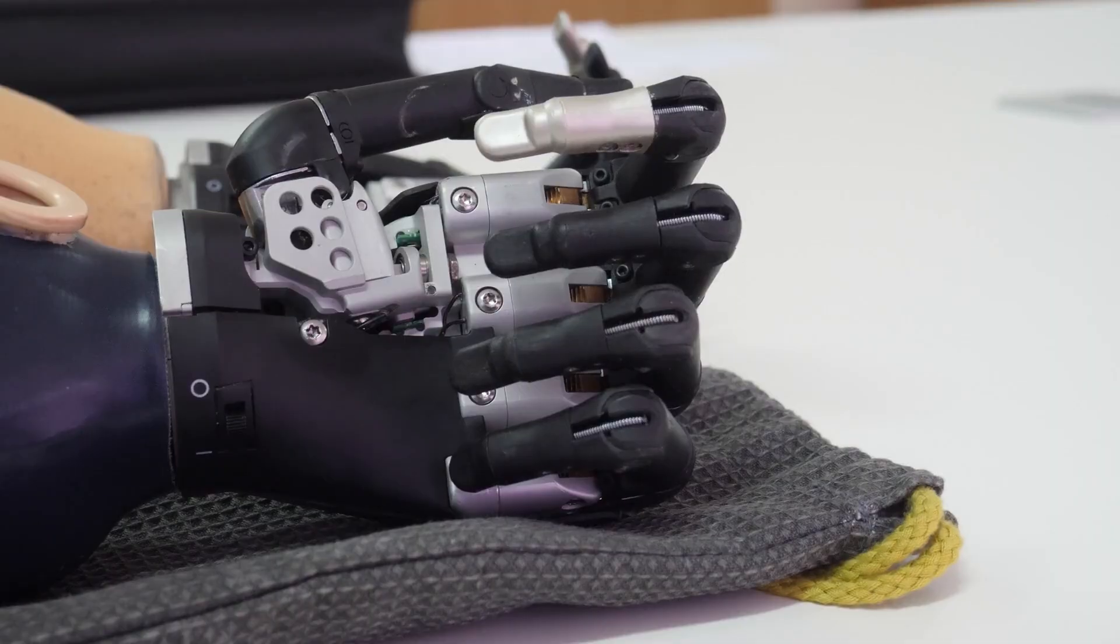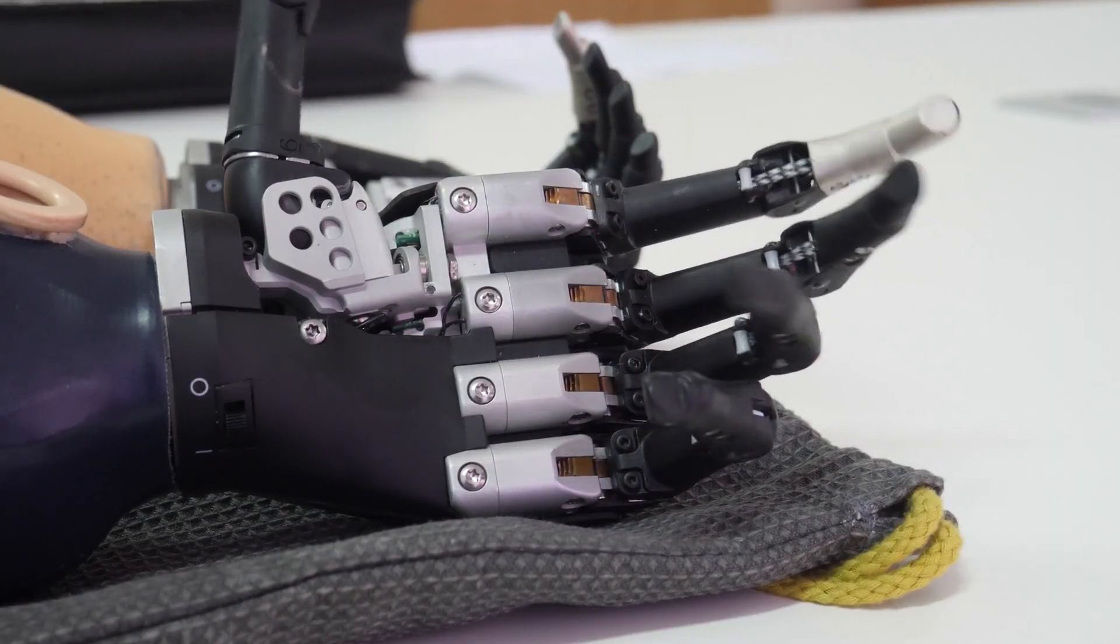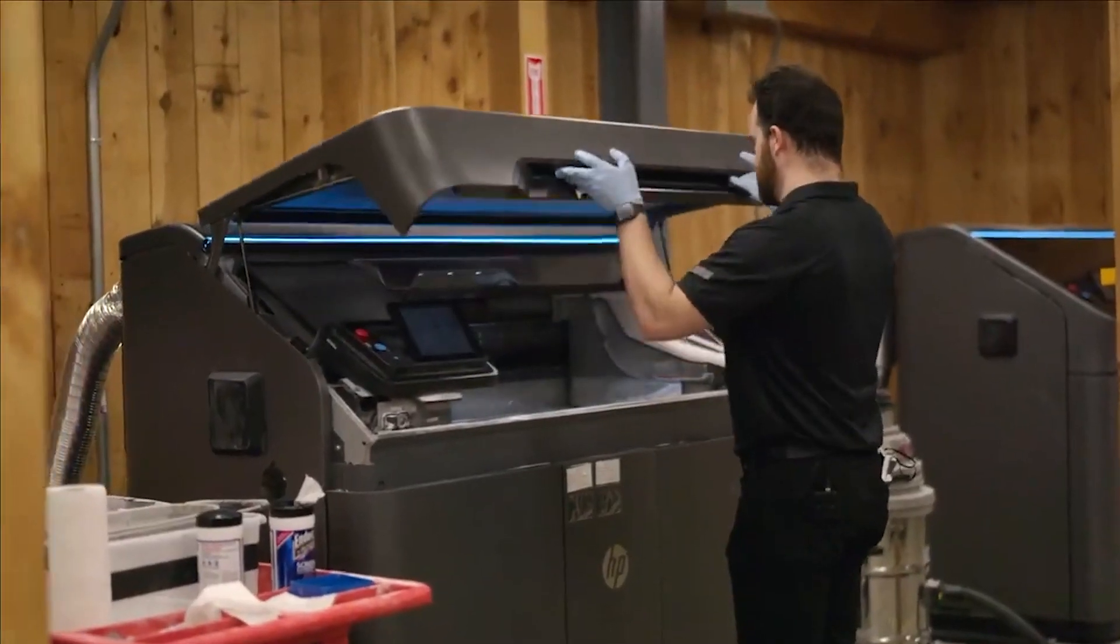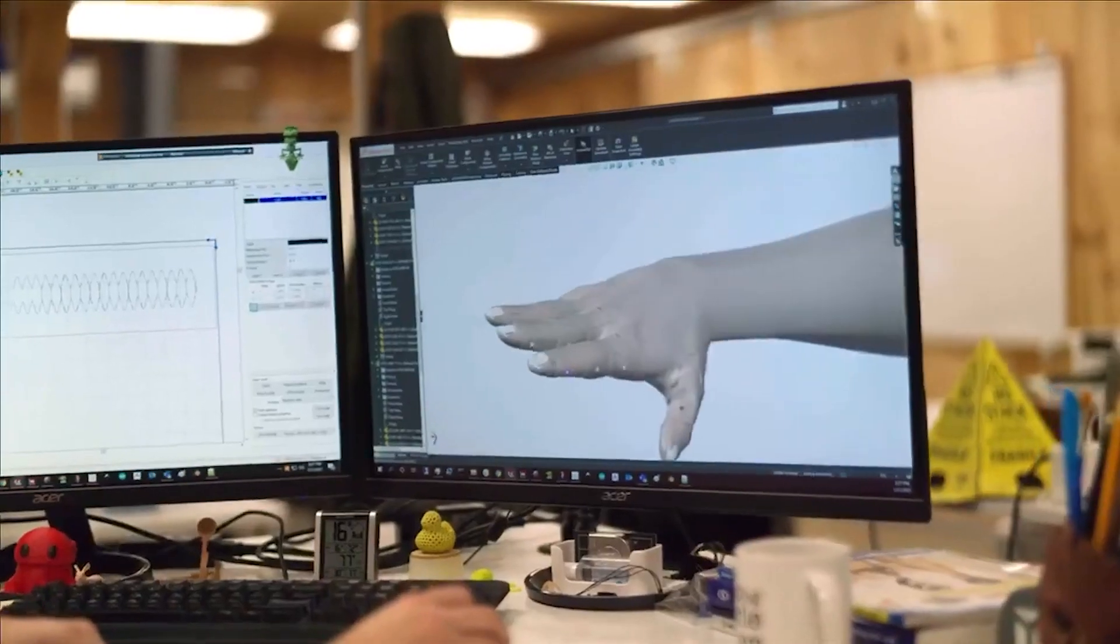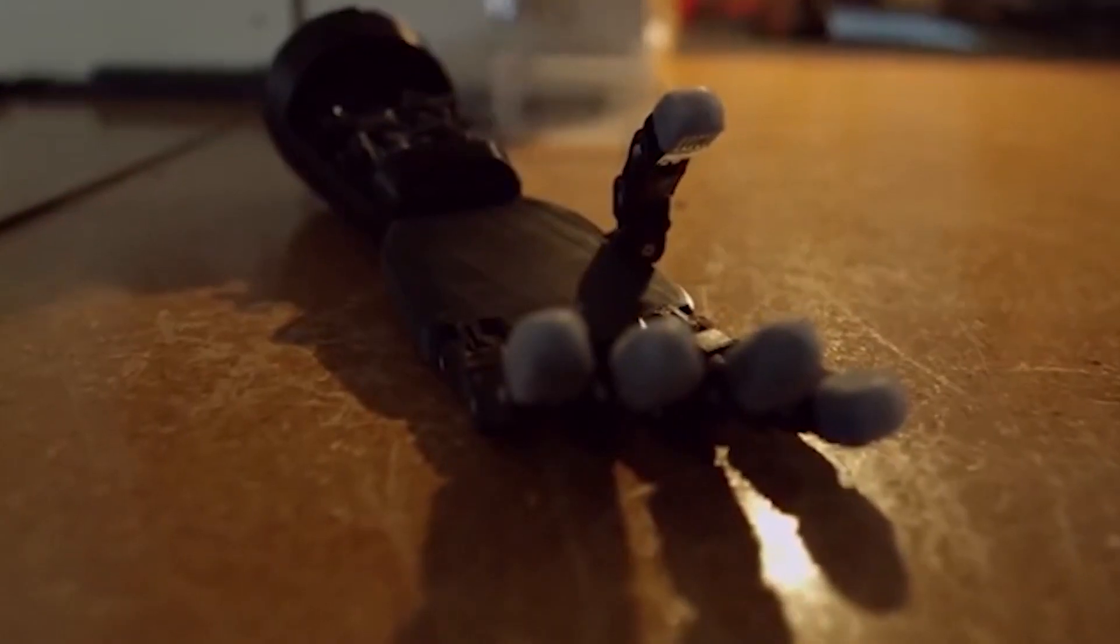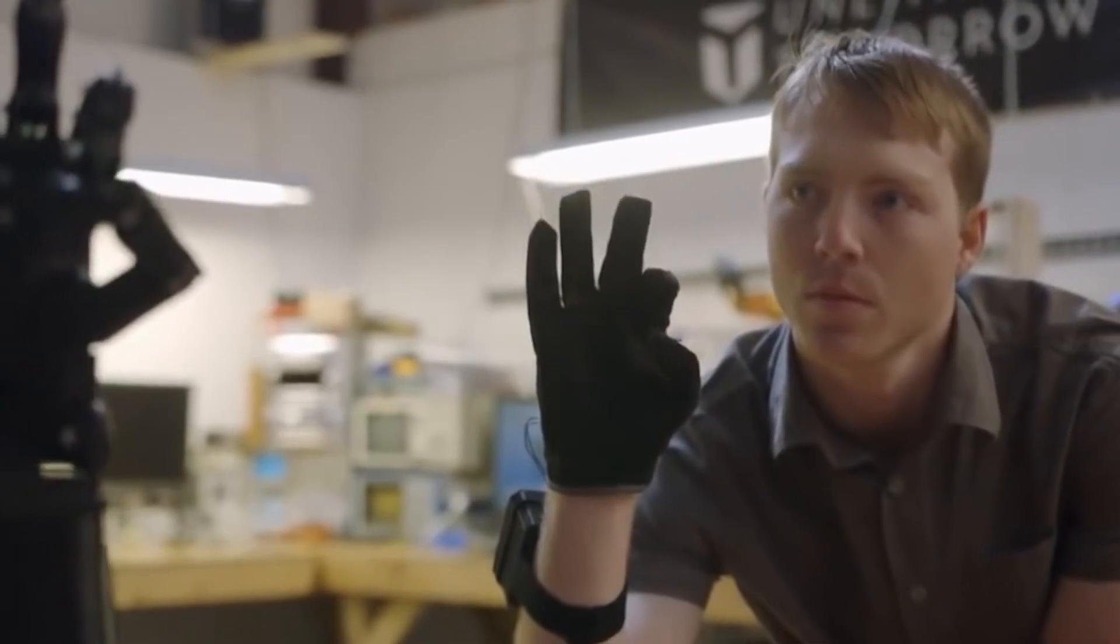The reason, as you may have guessed, is the cost. High-tech bionic arms can cost up to $80,000. However, this situation may change completely very soon. The Unlimited Tomorrow startup is ready to revolutionize prosthetics, and in this video we'll show you exactly how.